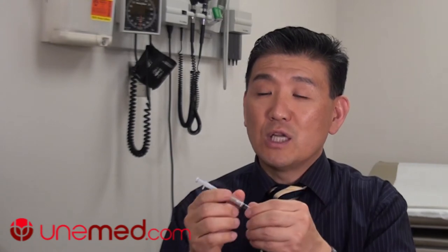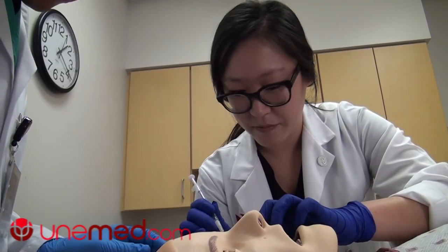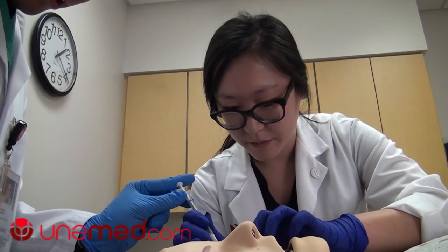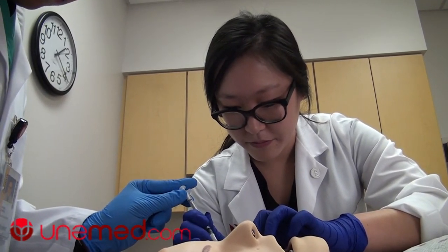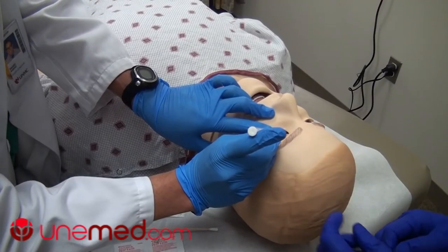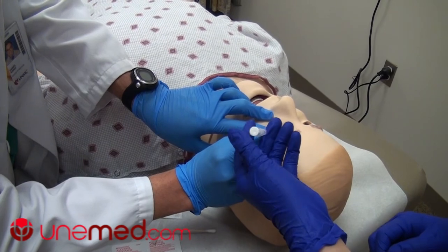What I actually have been doing, along with many other surgeons, is asking your assistant — like having a third hand — to inject the medication while you're holding onto the syringe. So basically, you're relying on someone else to inject the medication. Unfortunately, this is extremely risky because you don't have any control over the person who's injecting.